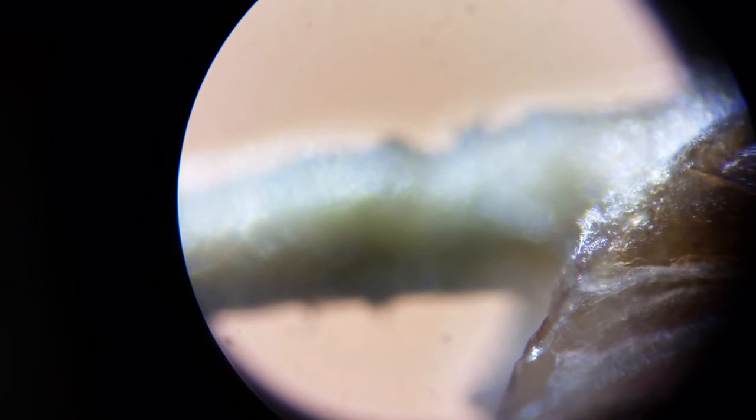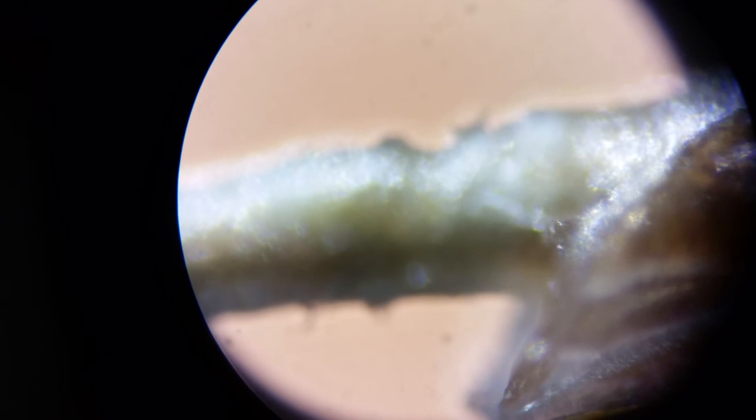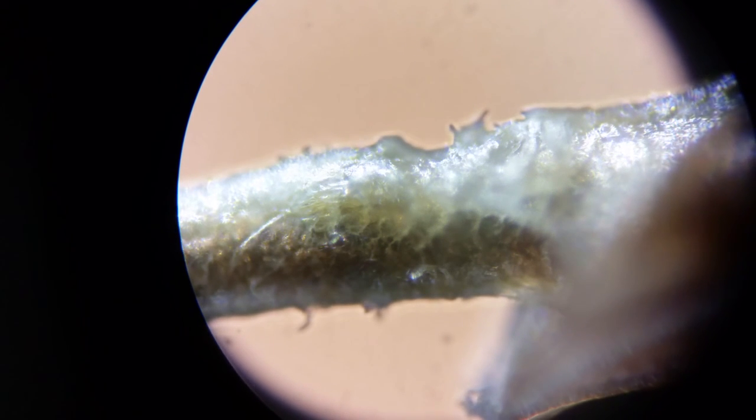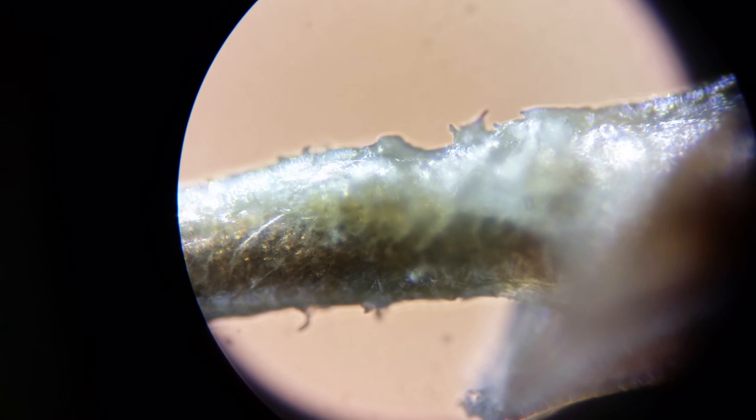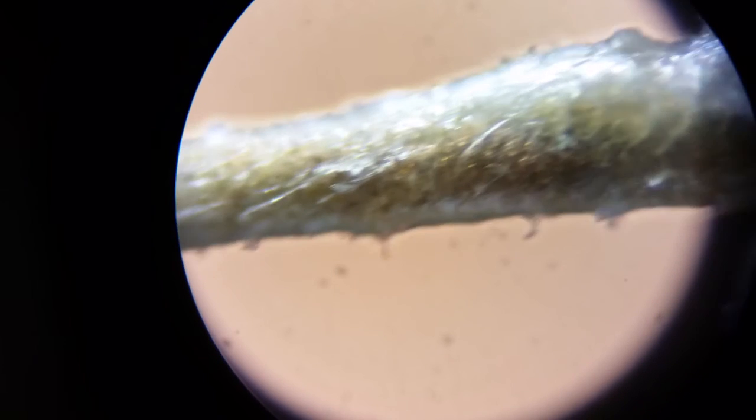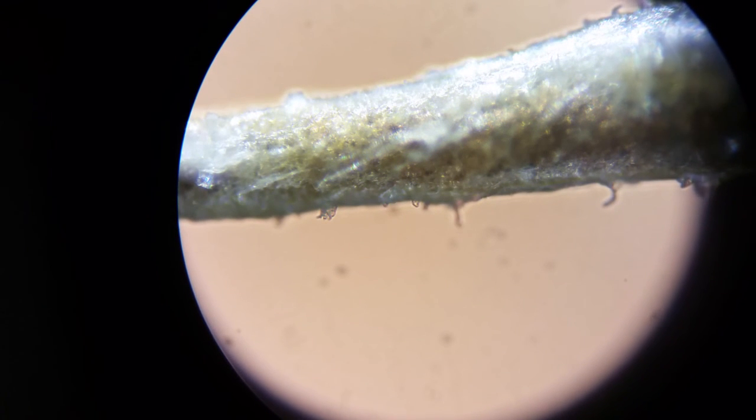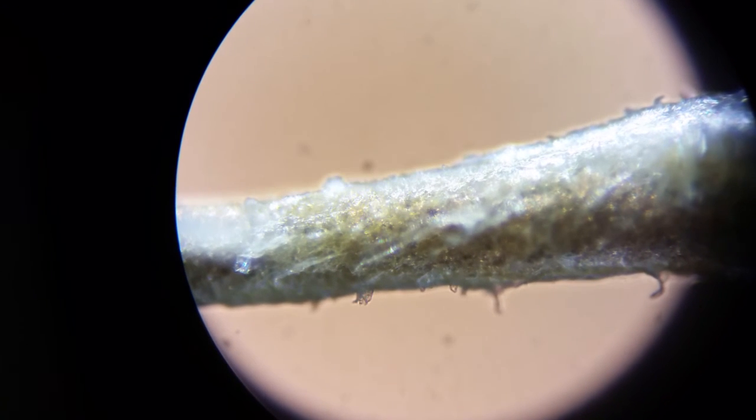And then further down, it's just the same stuff basically. Just the same, I imagine it's the same stuff that scabs are made out of and the body's just doing its best to get rid of or encapsulate the sensor at the point of annoyance.